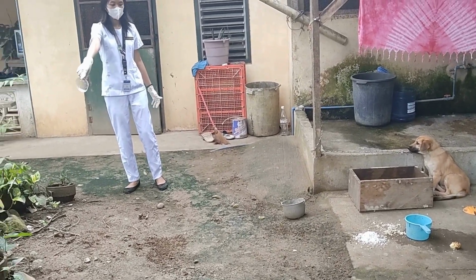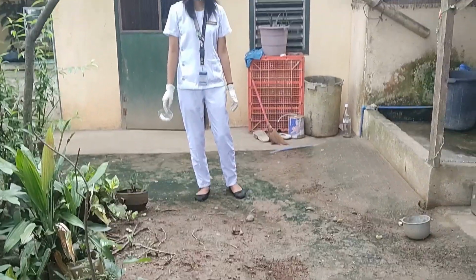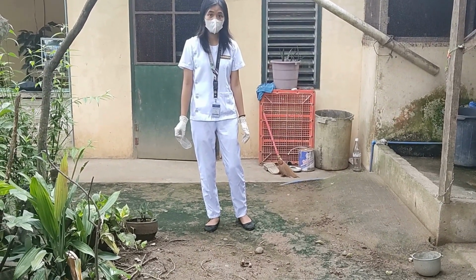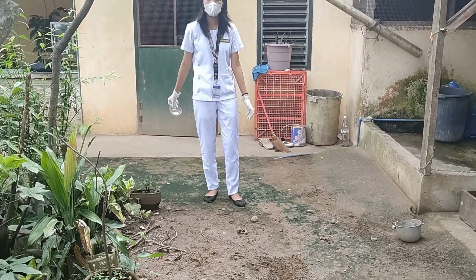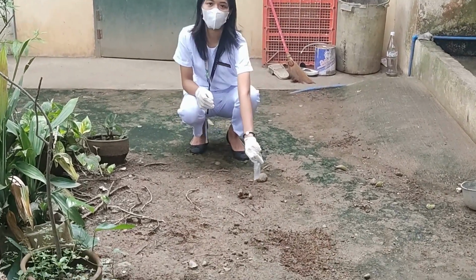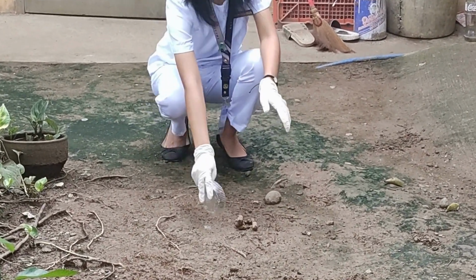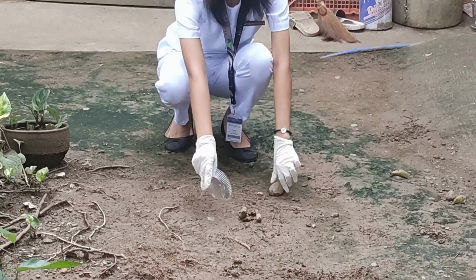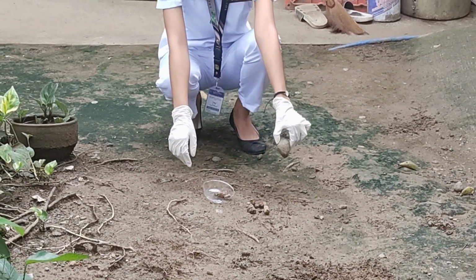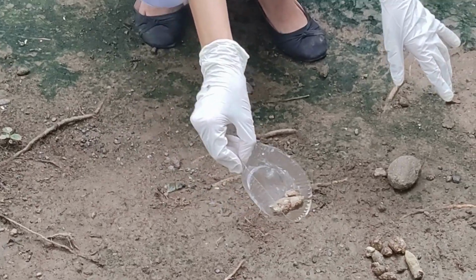This dog is kept inside a cage and sometimes freed outside the house of its owner, wherein stray dogs are roaming around the street. The dog also does not have regular deworming and was only dewormed when it was a puppy. The stray dogs that it usually plays with also did not undergo regular deworming. The collected feces was stored in a container and was collected just hours before the said laboratory, ensuring its freshness.